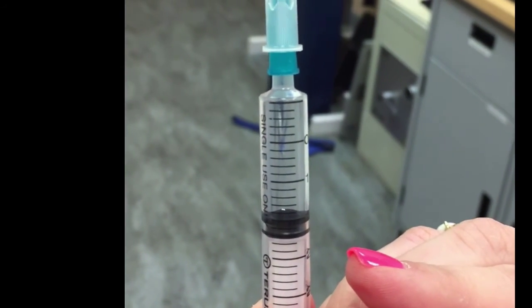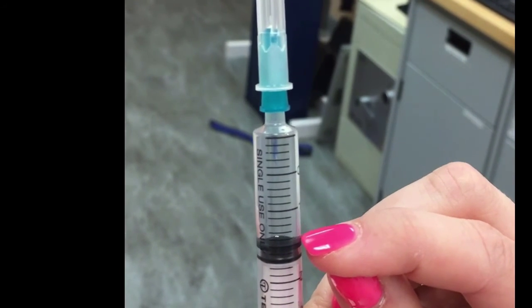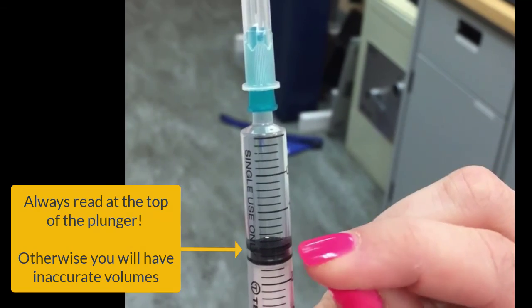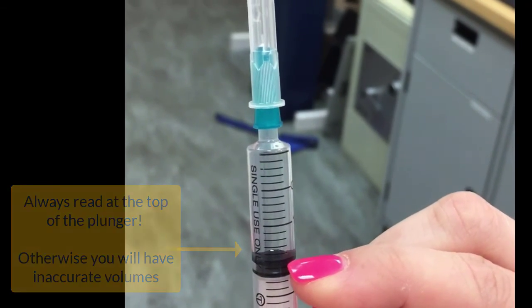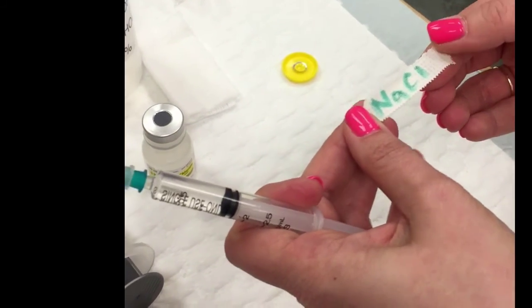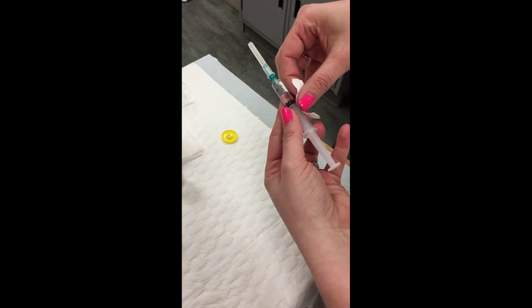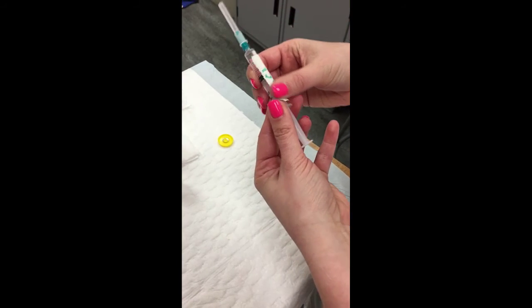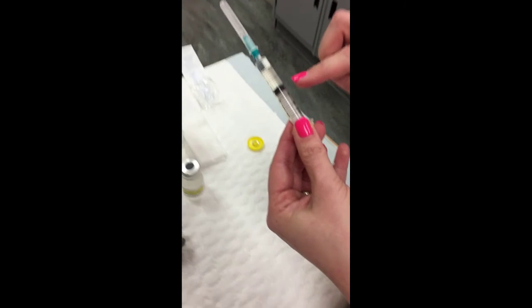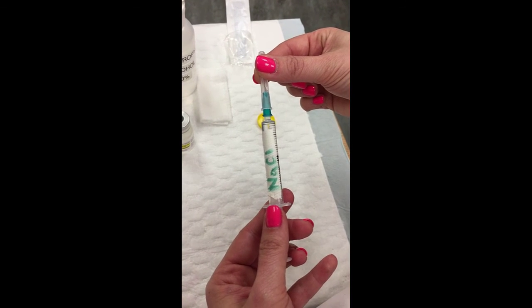So when you are looking at the volume that you're drawing up, you're always looking at the top part of the plunger, not at this bottom part and not at the top of that little meniscus. You're going to look at this top part of the plunger right here. On my medication, it should always be labeled so no mix-ups happen, and so that way we know exactly what we're giving to our patient. And you want to make sure that when you place the label that it is not in any way blocking the graduations or the area where you're going to see it go into your patient. So you'll see that I have it on the back of the syringe.